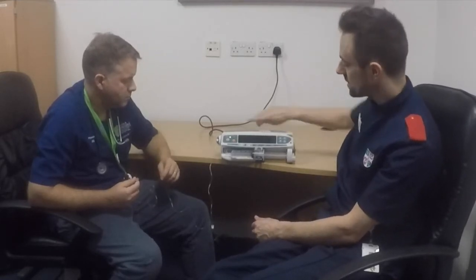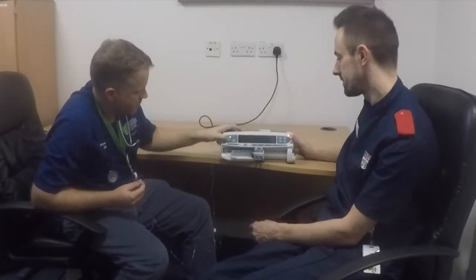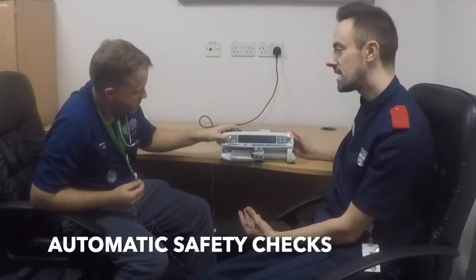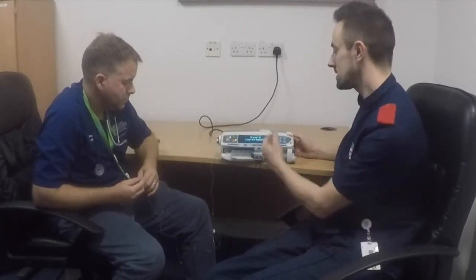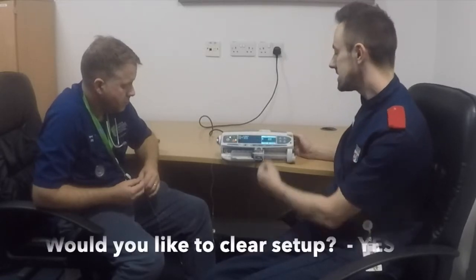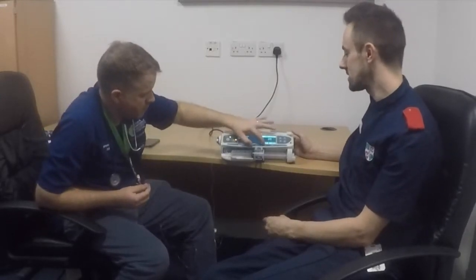You're now ready to turn the pump on. Press the power on-off button. The device is now running through its safety checks, and you'll see on the screen that it is a hospital pump, so we can use it in this department. It's now asking you, would you like to clear the setup? Yes, you would — so select yes for clear setup.